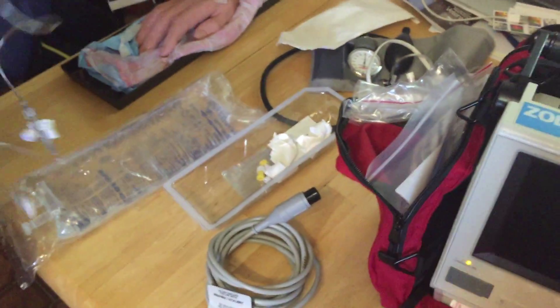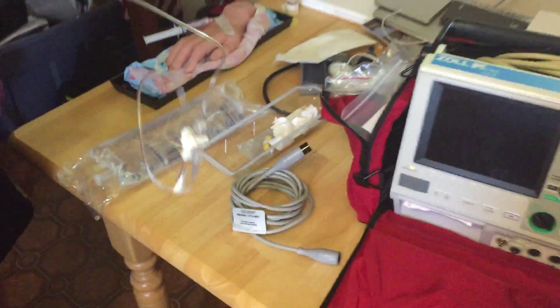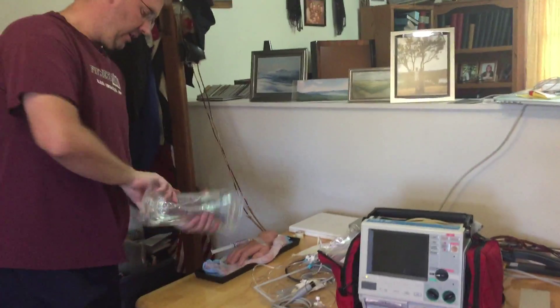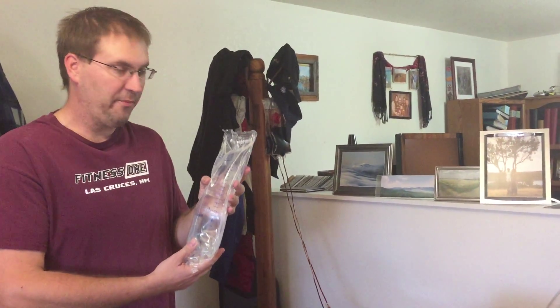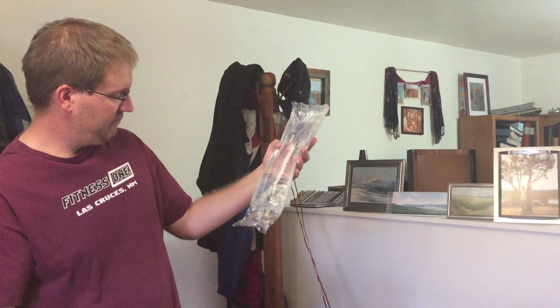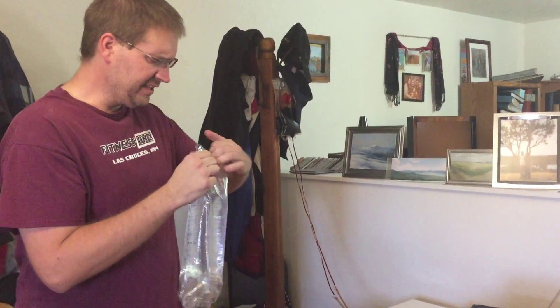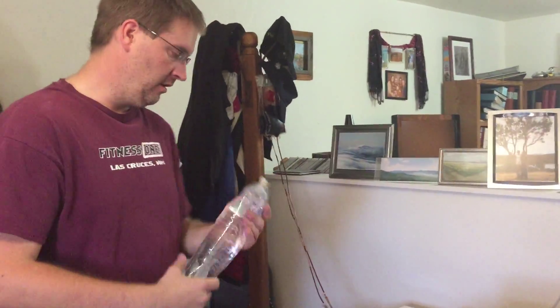So the first thing we're going to do is go ahead and set our tubing up. For the invasive tubing you're going to need an IV bag. Some people tend to use a heparinized solution; we typically just use normal saline. This is actually lactated ringers — it's still in date, but we're going to go ahead and use it anyway for simulation purposes. Setting this up is similar to spiking an IV catheter; however, the big difference is you don't want any bubbles in your line.